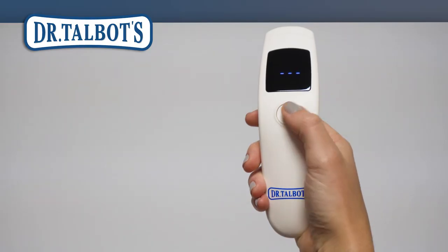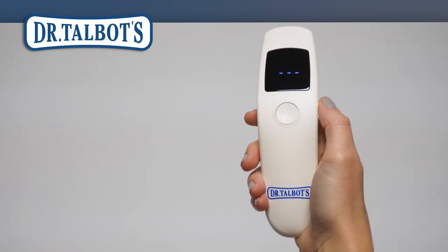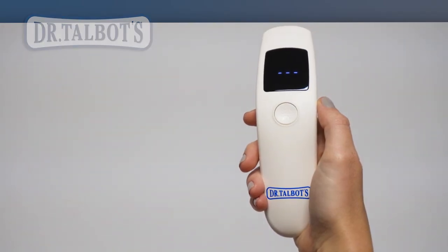After 4 seconds of inactivity, the infrared thermometer will turn off and remain in the measurement scale of your selection.